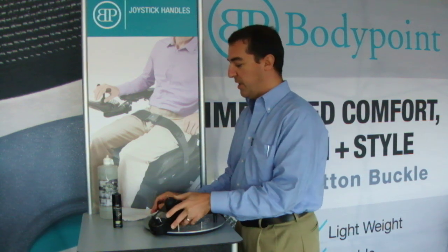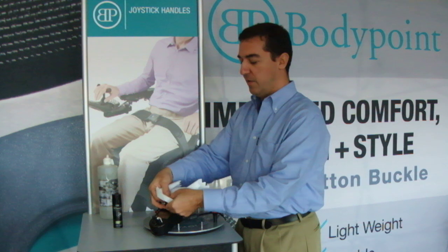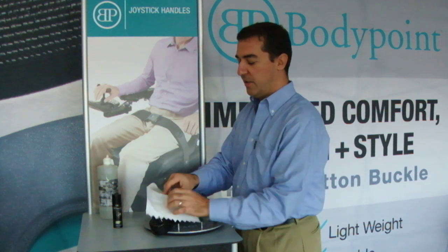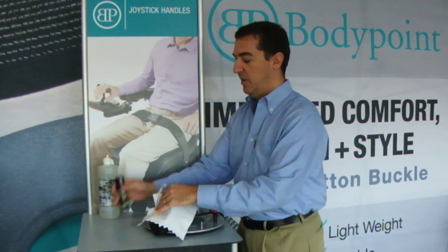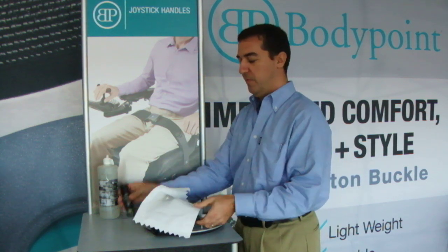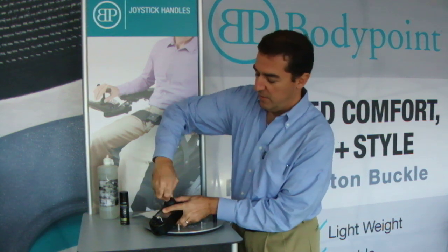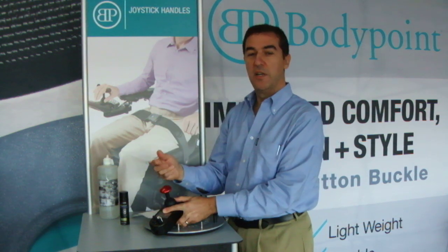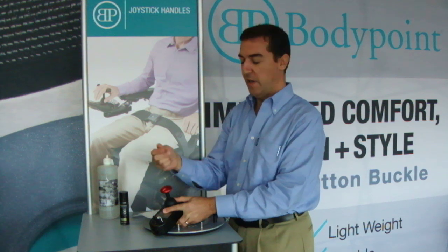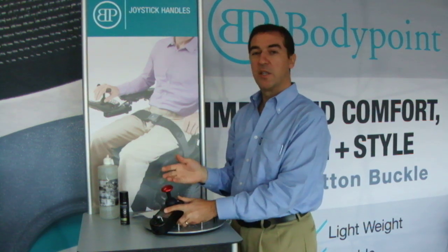Taking the joystick box, use a rag or a piece of cloth just to protect the rest of the box. Spray a little bit of hairspray on the metal stem, and then do the installation as before. The hairspray actually makes it very easy to get the stem into place as it acts to make it a little bit slippery. Let that rest for about an hour.